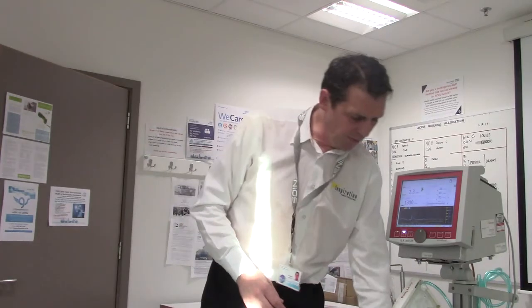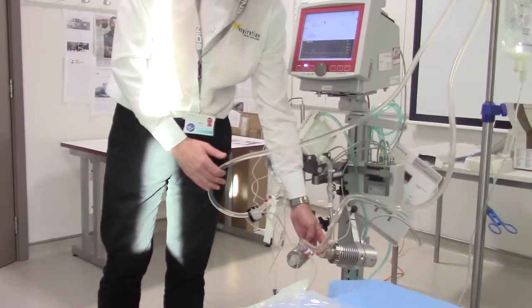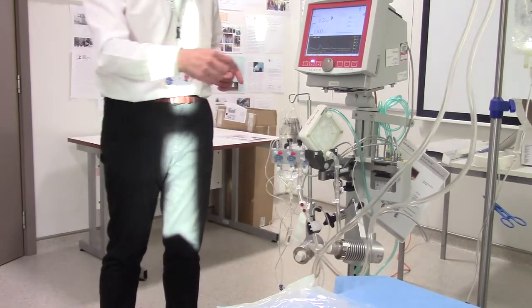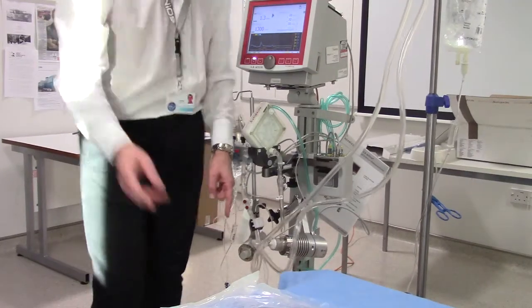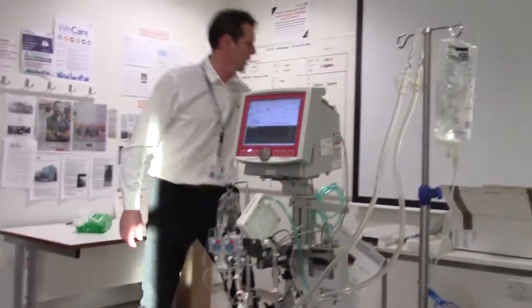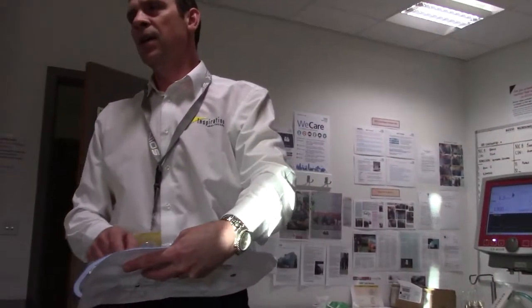If you get air in the system, there'll be an alarm from the flow sensor. What you could do is go to your last three-way tap. If there are big columns of air, stop the system, turn your three-way tap to an open port, stick a syringe on, and suck it out. Equally — some people like it, some don't — you can add a three-way tap on the single cannulas closest to the patient's neck, so you can withdraw blood just before it gets back to the patient.